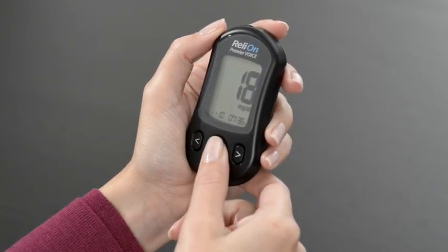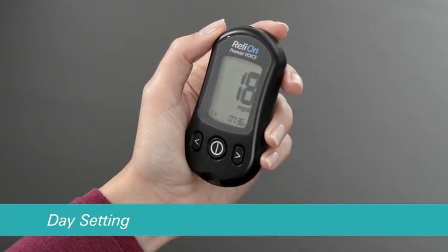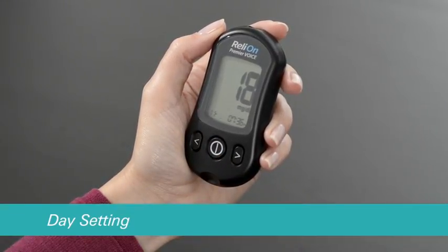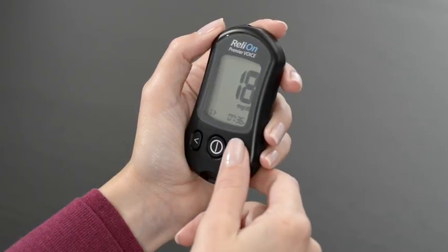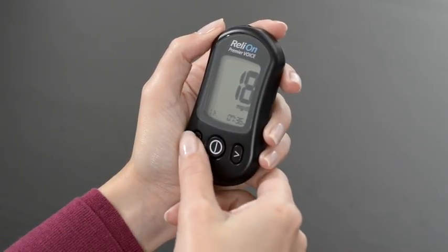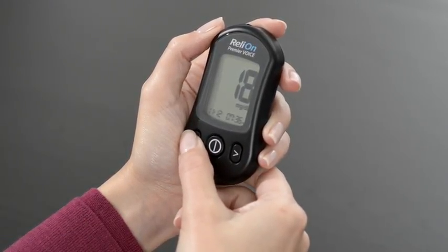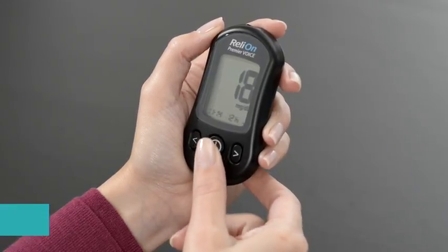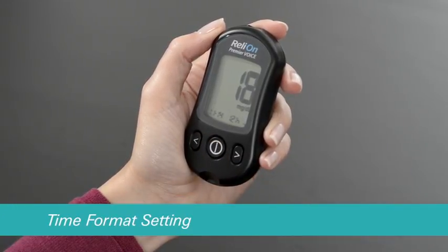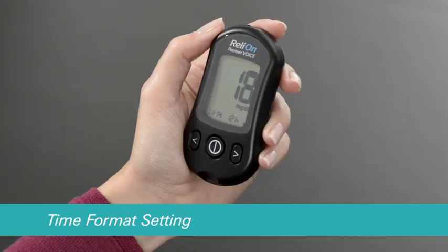Then press the center button to proceed to the day setting. Use the left or right arrow buttons to set the day. Then press the center button to proceed to the time format setting.